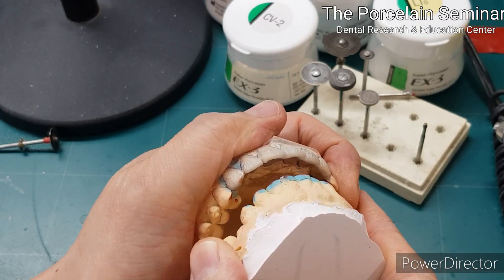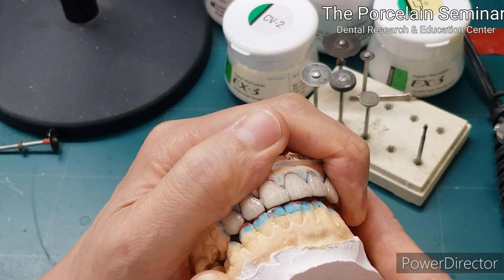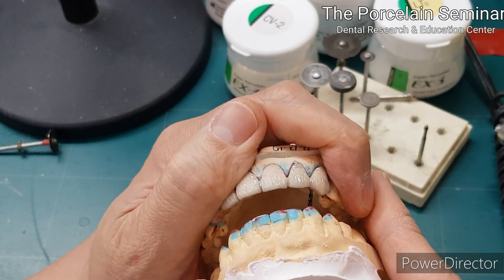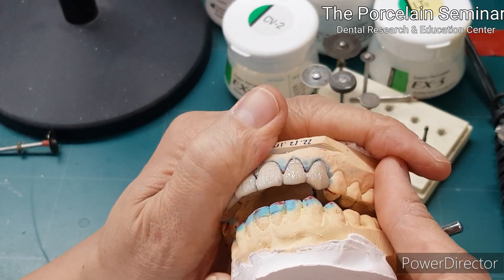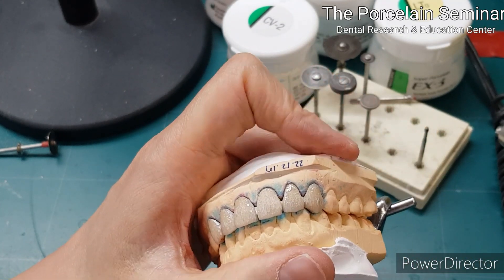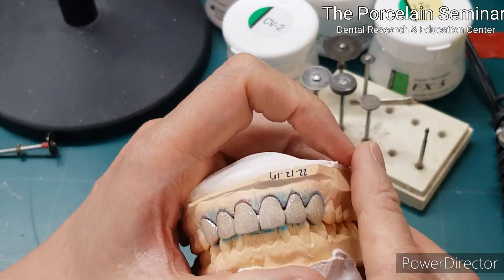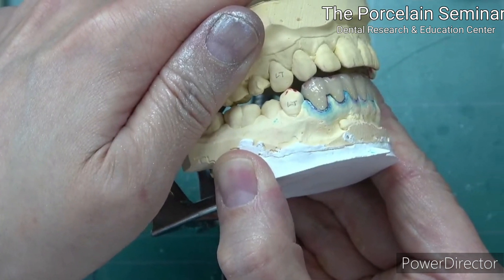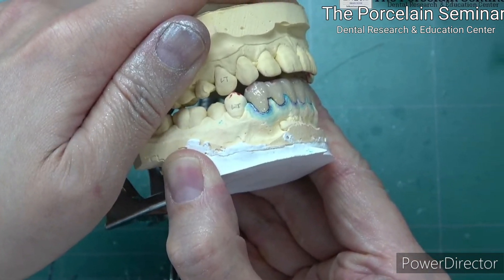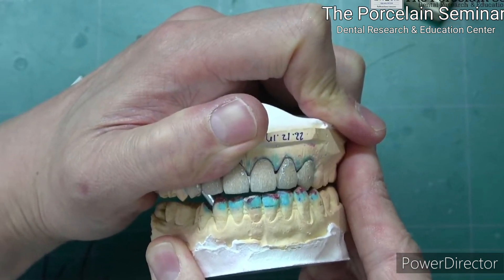기공사들이 하는 것 중에 제일 잘못된 게, 만약에 측방을 보겠다면 이런 식으로 밀어서 측방을 확인한다. 그렇지 않아요. 환자들은 여기서 음식을 씹어서 CO로 가져갔기 때문에 이런 움직임을 줘야 된다는 얘기죠. 자연치와 달리 일치대 일치가 되었을 때는 보철은 파절의 위험성이 있기 때문입니다. (The biggest mistake dental technicians make when checking lateral movement is simply pushing sideways — that is incorrect. Patients bring food to CO through chewing movement, so that movement must be replicated. Unlike natural teeth, when prosthetics meet one-to-one, there is a risk of fracture.)